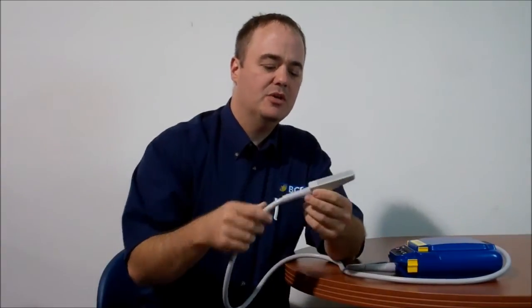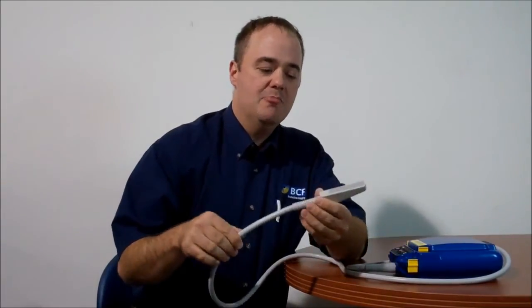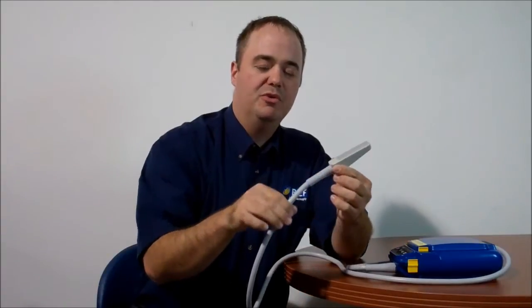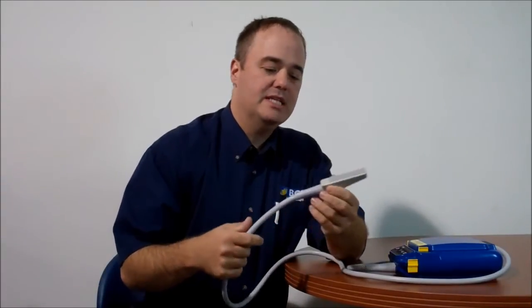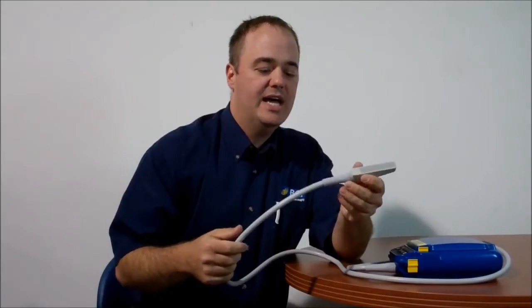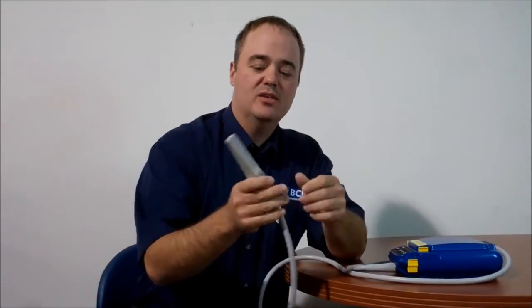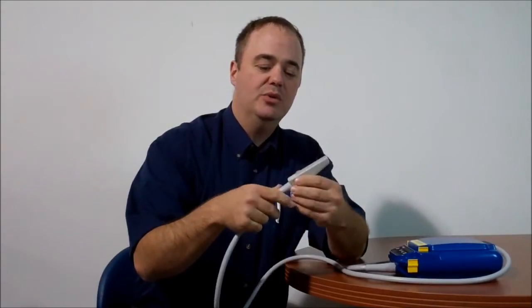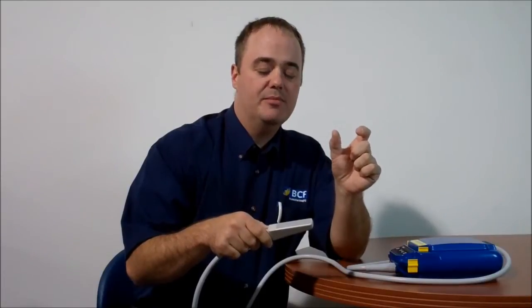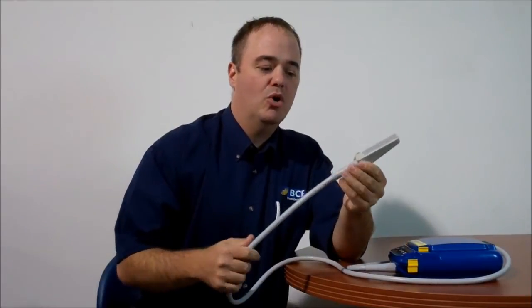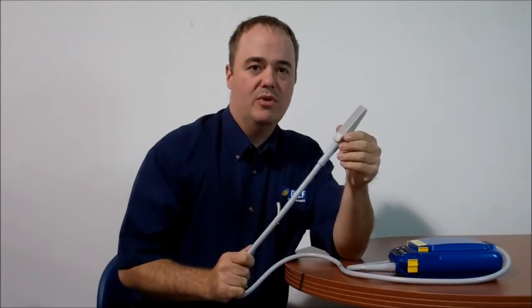Some of the other probes on the market may have a bundle of crystals with fewer wires going back to the machine itself. The disadvantage to that is when one of those wires would wear out, you would lose a whole section of your image. Whereas on our probe, each one is individually wrapped.